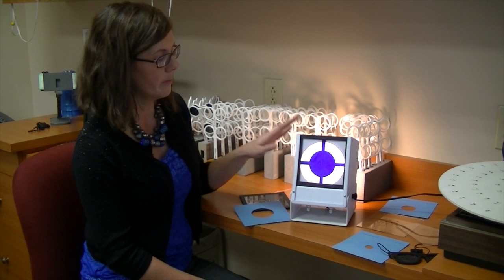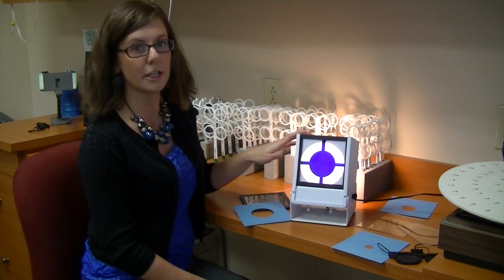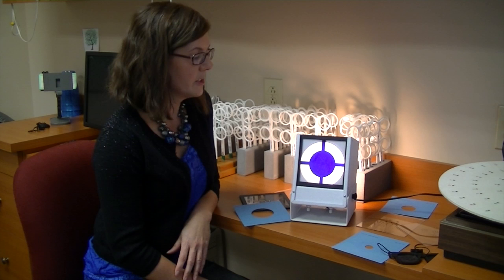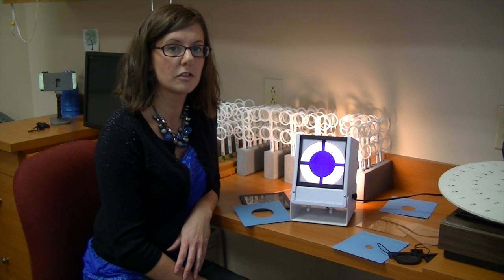This is called the Macula Integrity Test or Trainer, and it's an MIT. This particular instrument is utilized in vision therapy to help children and adults who have a condition called amblyopia.